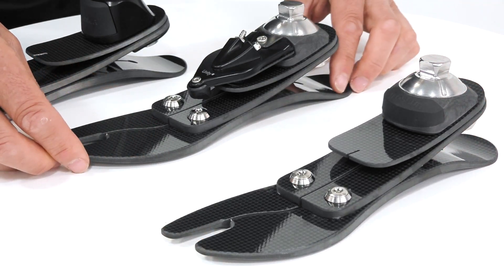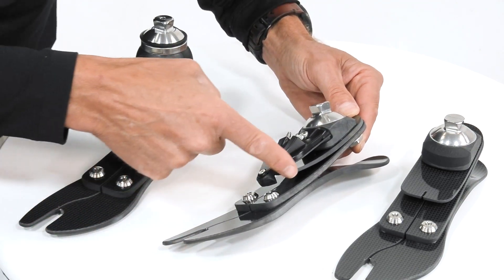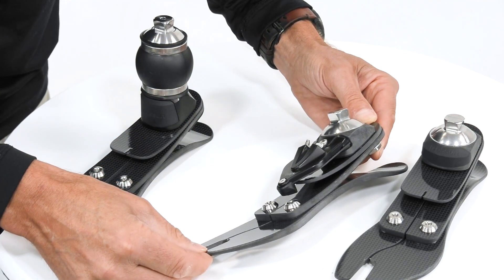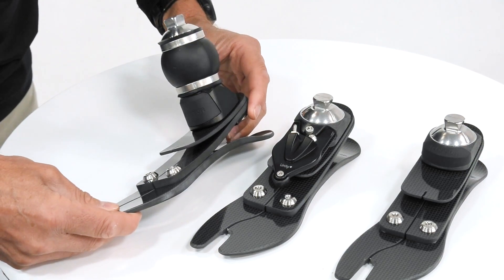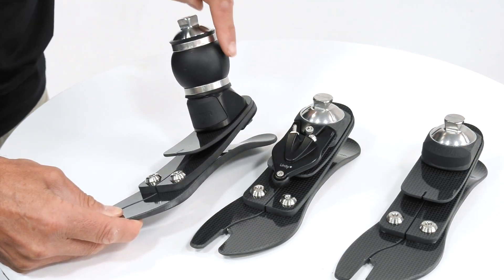It's also available with Unity. You can see this Unity pump featured on the top blade, giving assisted active vacuum. It's also available with this torsion rotation module, which has the benefit of rotational and longitudinal displacement.